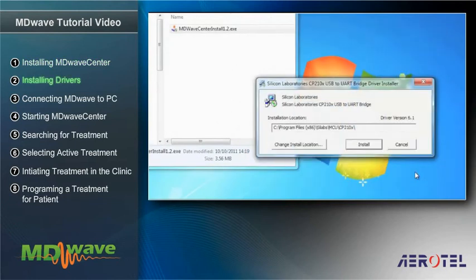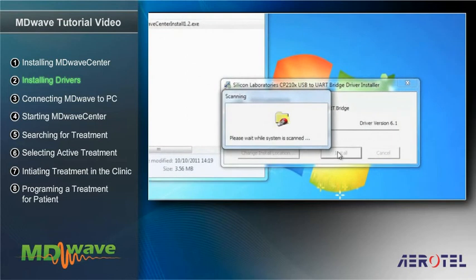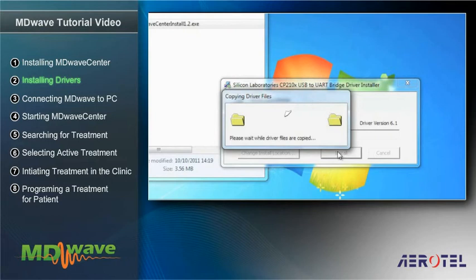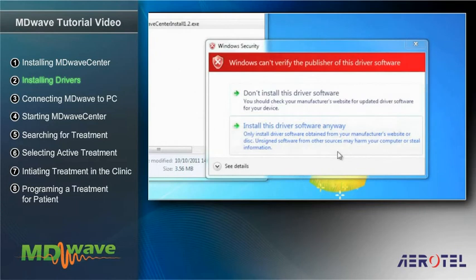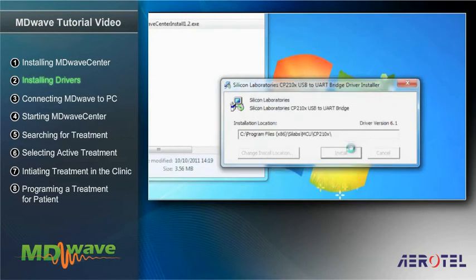In the next stage, the Silicon Labs driver for communicating with the MDWave device will be installed. Click Install. Wait patiently until the installation of the driver is completed. Next, a window relating to the copying of the driver file will appear, immediately followed by a warning announcement. Confirm your agreement to proceed with the installation by selecting Install this driver software anyway. Upon receipt of a window announcing completion of the installation, click OK.